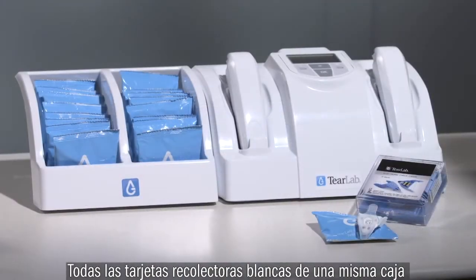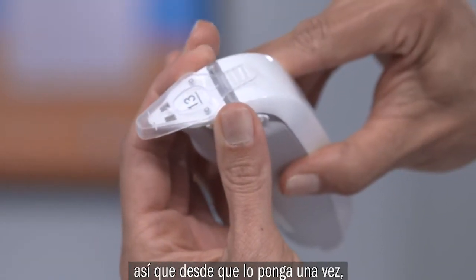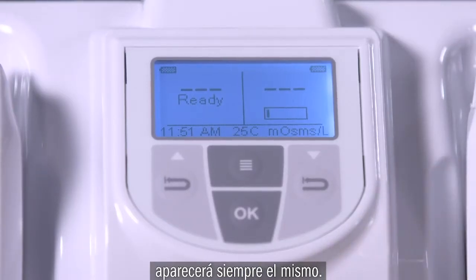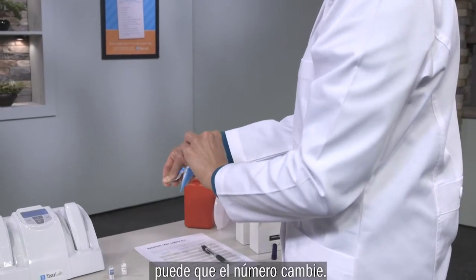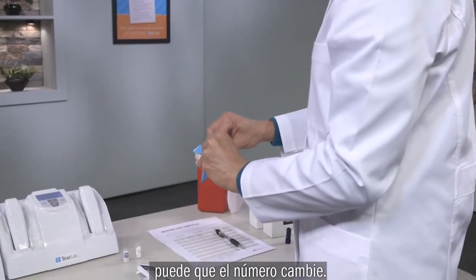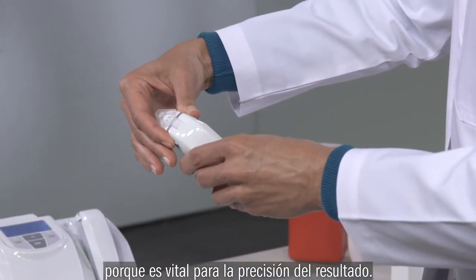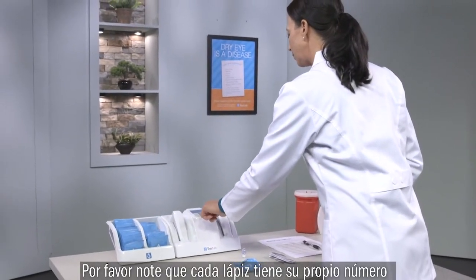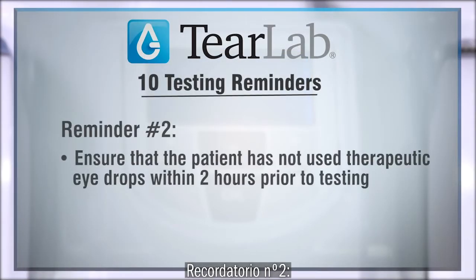All test cards in a single box will have the same calibration code, so once you enter the code into the reader for that box, the same code will appear automatically whenever you dock the pen into the reader. When you open a new box, however, the test card code may be different. It is vital that you enter the new code to ensure an accurate test result. Also, note that the code must be entered for each pen, and you must ensure that both pens are using the correct code.